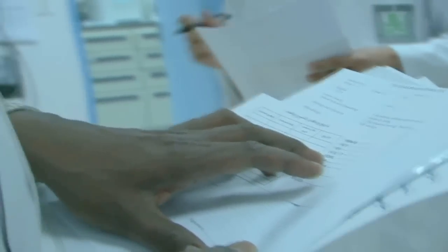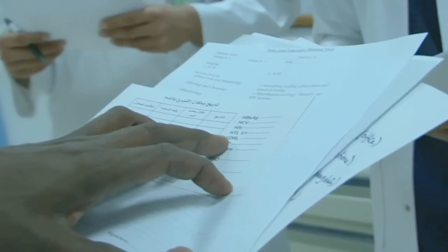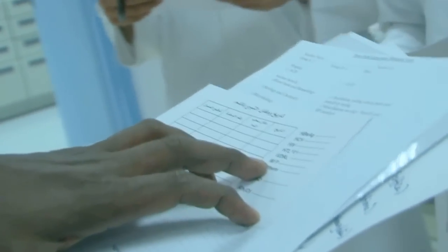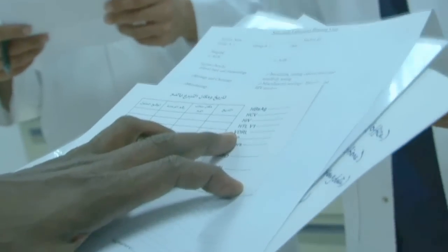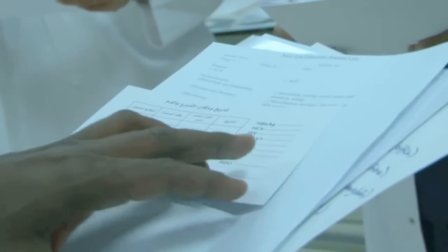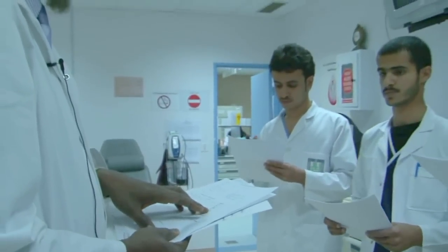And then we have, if you can see, this is 1, 2, 3, 4 are viral. These are viruses. Then we go below, we have VDRL. What is a VDRL? It is a test for syphilis, and the abbreviation VDRL is Venereal Disease Research Laboratory. Venereal means sexual. This is a test which is non-specific for syphilis. It is a screening test, and it's usually done as agglutination test, antigen antibody test. They are doing this test in the second place there, and we can see it later on.